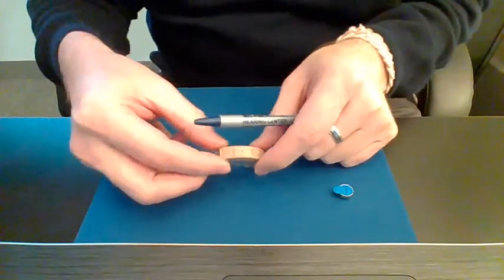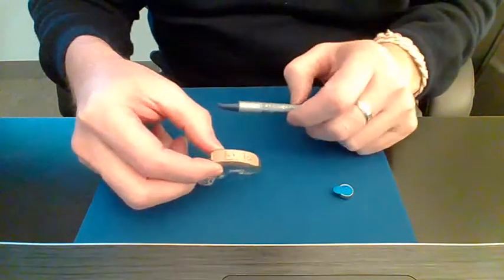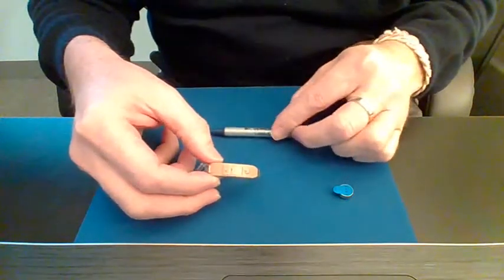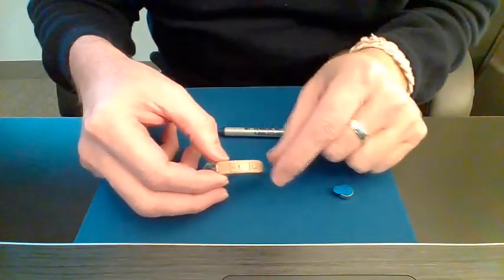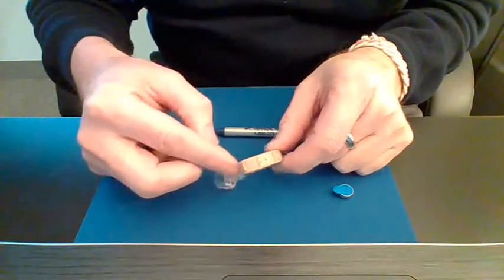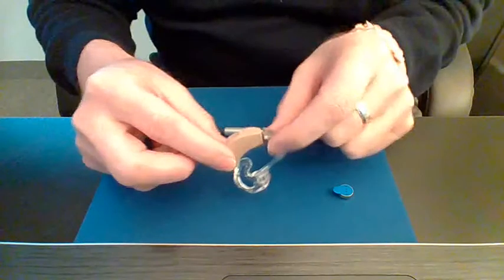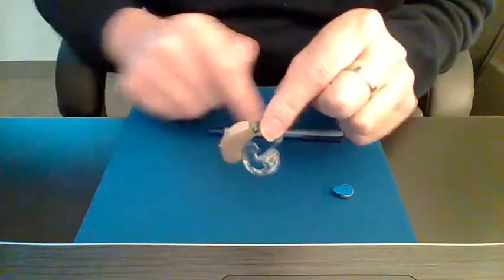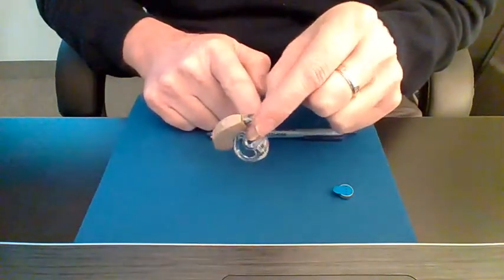Typically at the bottom portion of the hearing instrument, the hearing instrument sits over the top of the ear like this. The back of the ear, and then this part here goes in the ear, this part here hangs over the back of the ear.